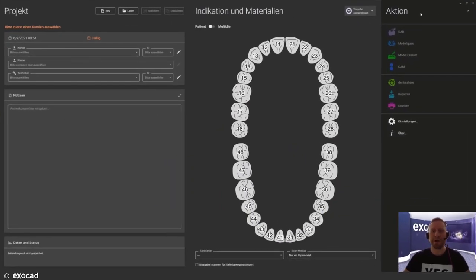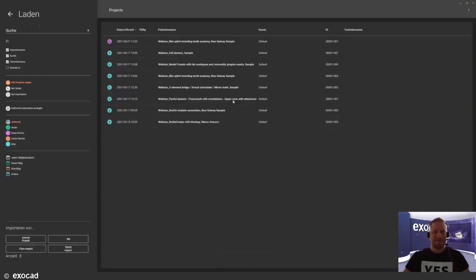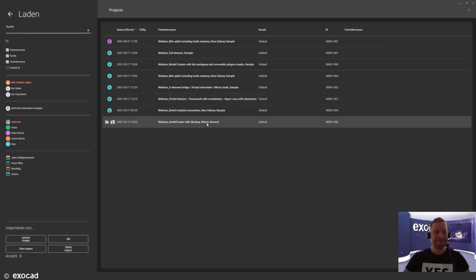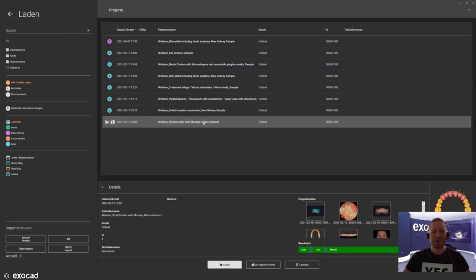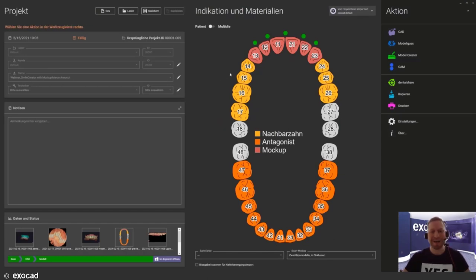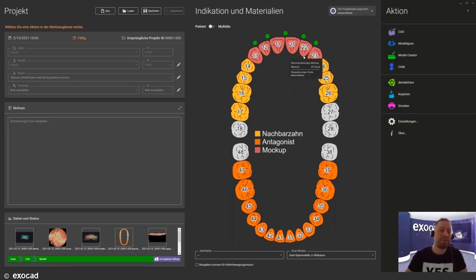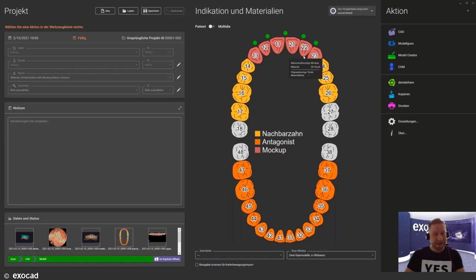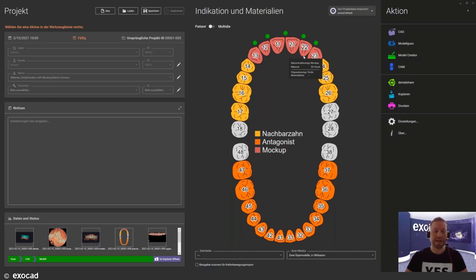We are going to start with a real-life case from team colleague Marco Anucci to create a mock-up design. Here we have the setup — we will start with a mock-up, meaning we have an unprepared situation and we're trying to create a new smile before the operation. It is a very nice tool to demonstrate for any dentist as well as the patient what the future smile will look like, sharing results in the form of pictures or even a full mock-up model.